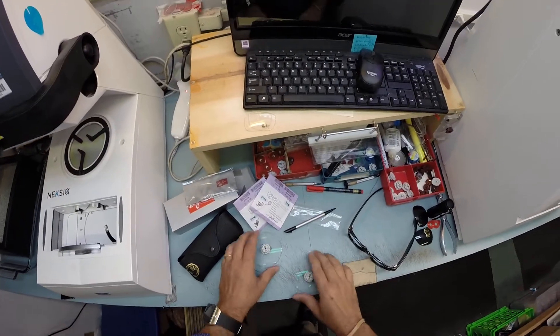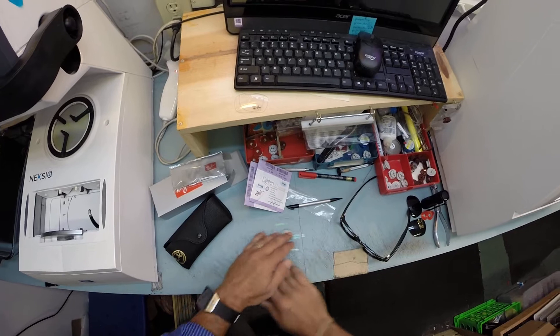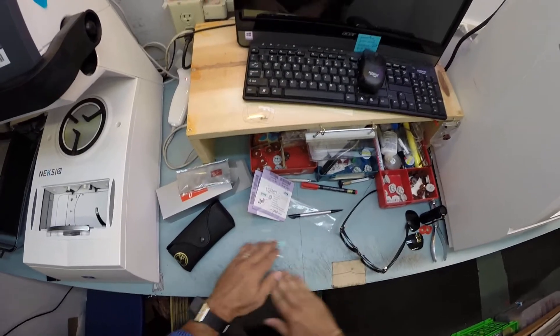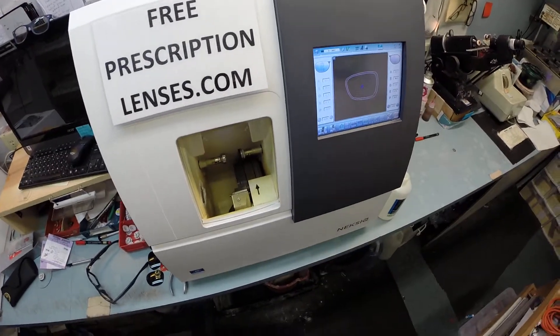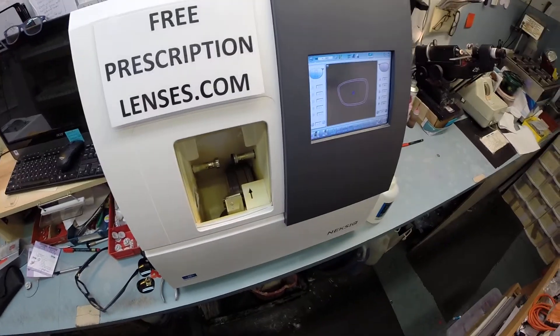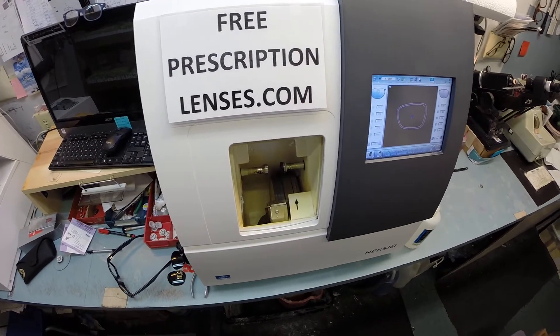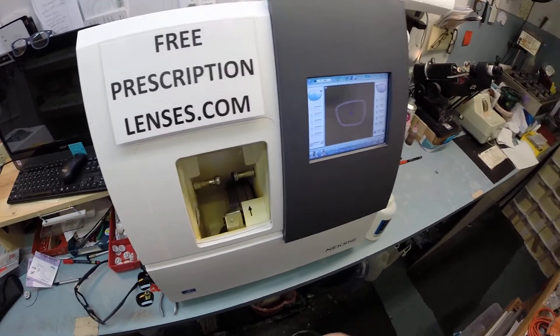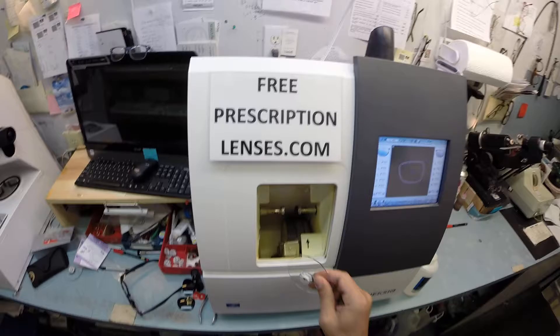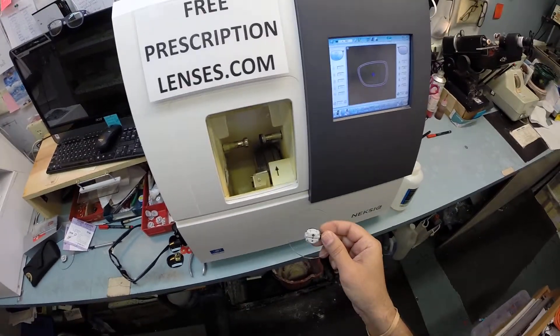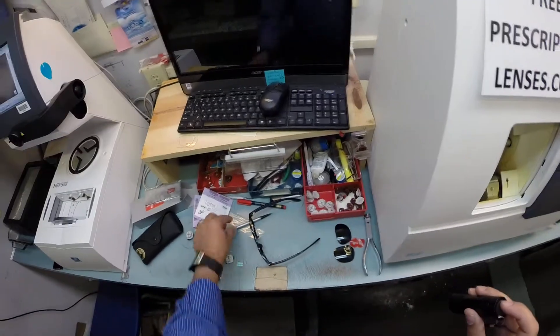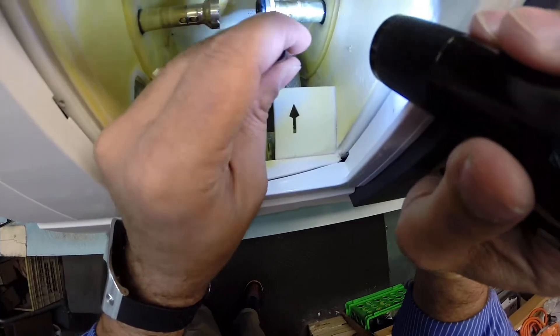Is it the right? Is it the left? Keep track. Which one is which? So this is the edger. This is what costs $40,000. It weighs 200 pounds. I recommend everyone go out and buy their own. Then you won't have to have me cut your glasses. You can cut them yourself at home in the privacy of your kitchen, or bathroom, or boudoir. Wherever people cut lenses at.